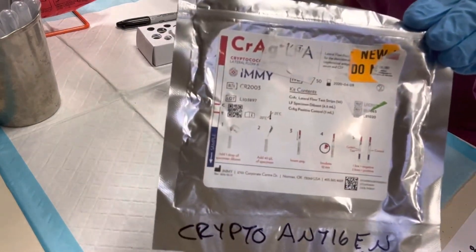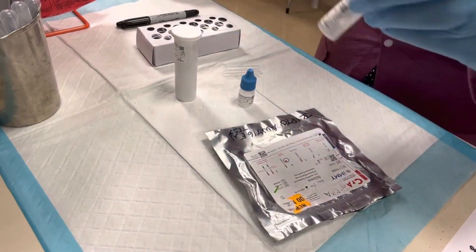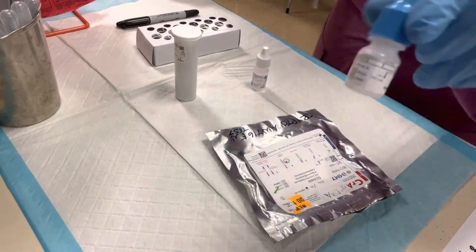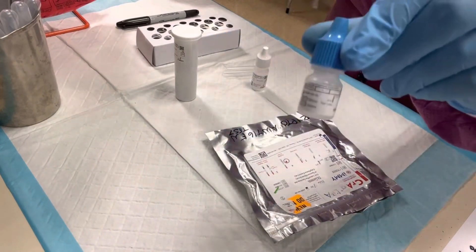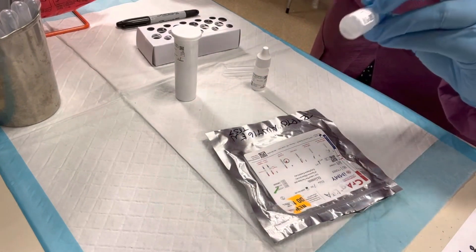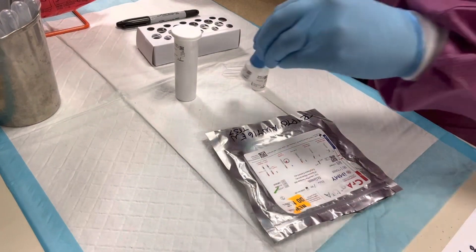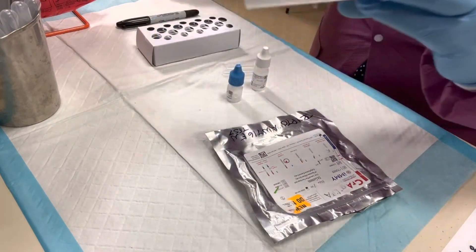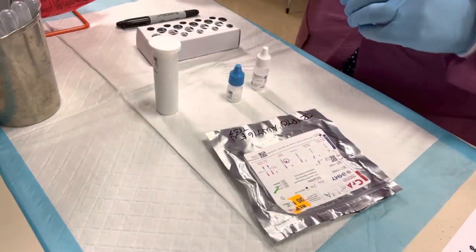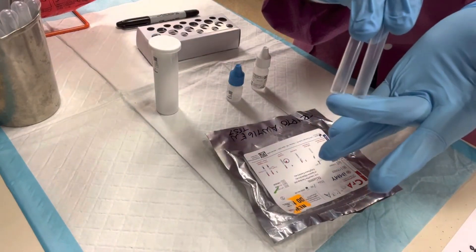The kit comes in this little bag and includes a few different materials: a specific diluent for this test, a positive control — because I don't have a patient with cryptococcal meningitis, thankfully — and the actual dipsticks. I've also provided testing aliquots made of plastic.